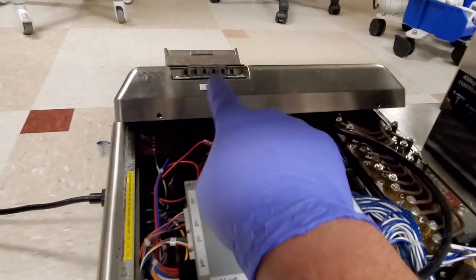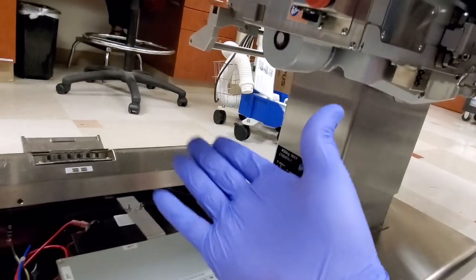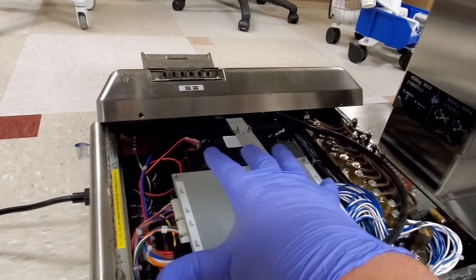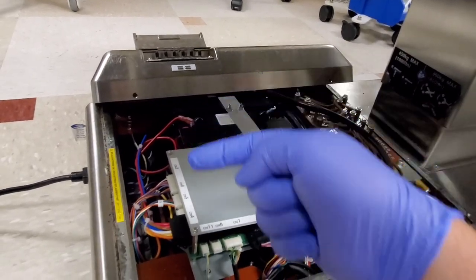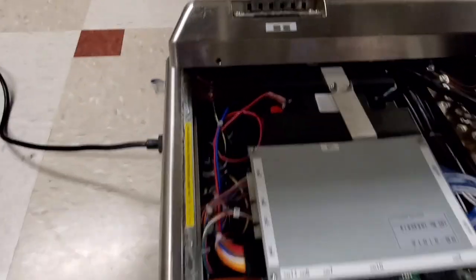You can see I've got my manual controls hooked up. My remote is currently not hooked up — they're going to bring me one so I can finish up the test. But it's not drawing too much current because all it's doing is float charging the batteries. I'm going to go ahead and raise the table up, activate the hydraulic pump system, and you should see a jump in the equipment current over on the safety analyzer.